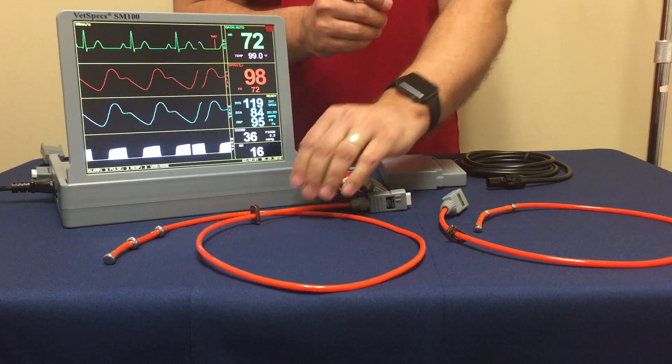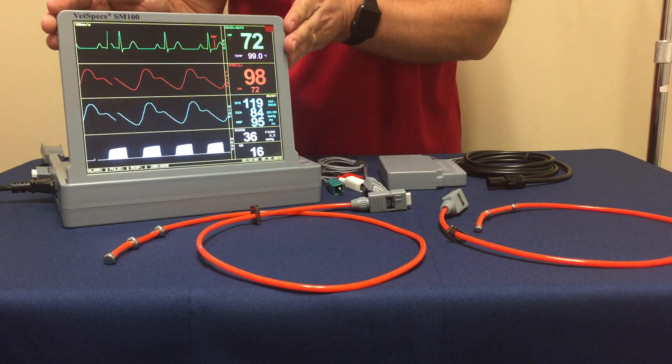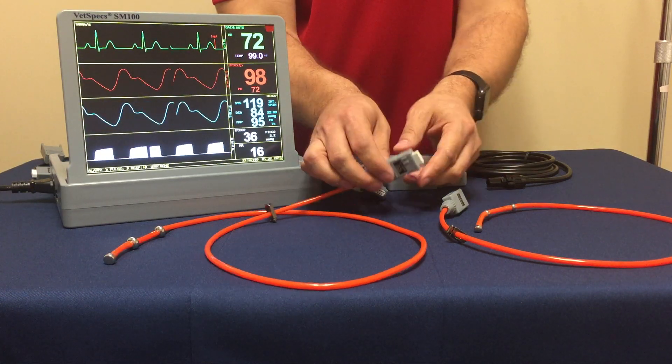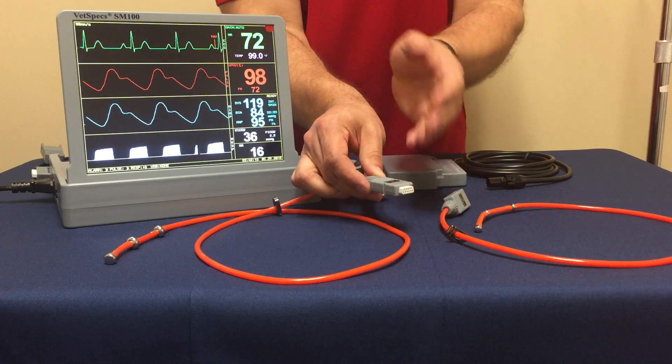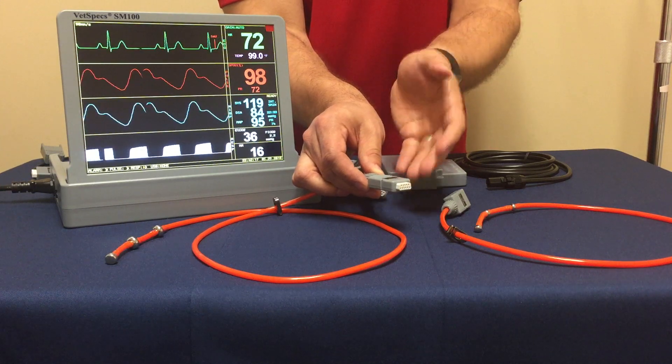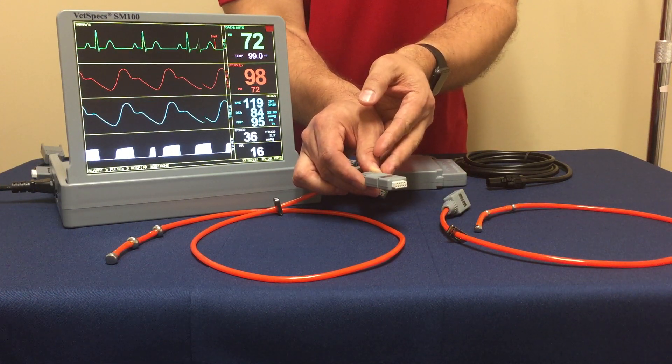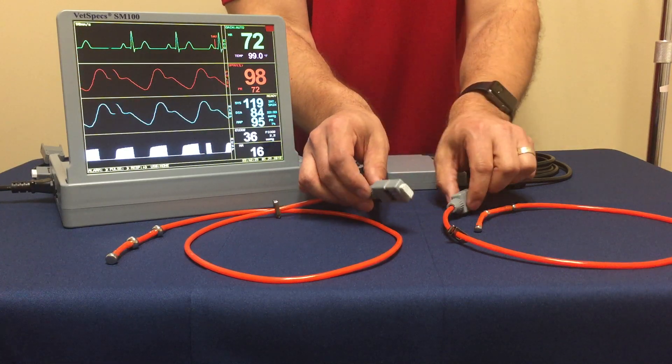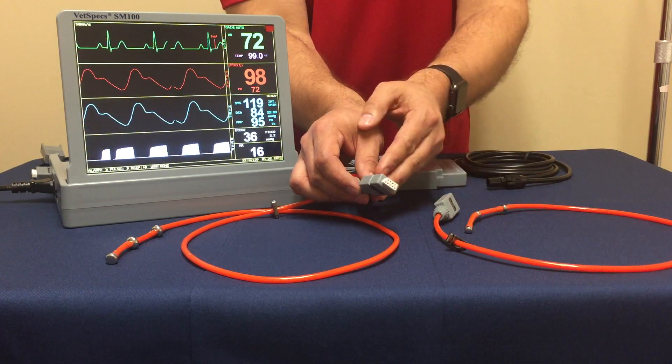The esophageal probes are very easy to insert. You get a lot of information with that single connection, very hardy. One thing that I also like to mention is the new gray connector that they're utilizing. This is standard with their new SM100 but this is a connector that actually will work with VetSpecs monitors that have an ECG function dating back all the way to 2007 to current. So that's a somewhat universal connector for their own brand.